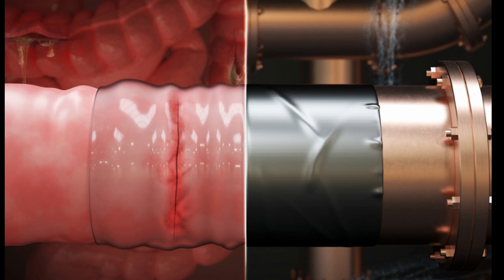They also added a second, non-sticky top layer to keep the patch from sticking to surrounding tissue. This layer was made from a biodegradable polyurethane that has about the same stretch and stiffness of natural gut tissue.